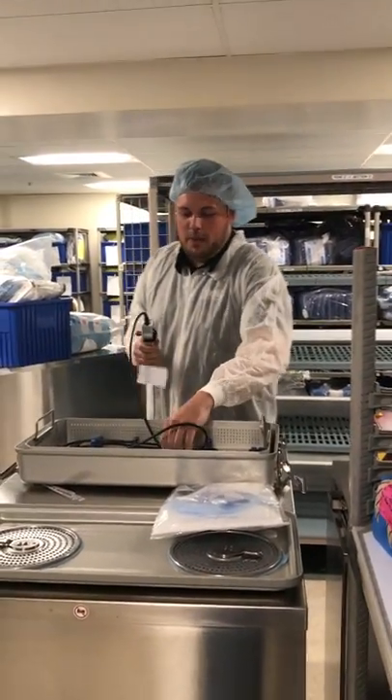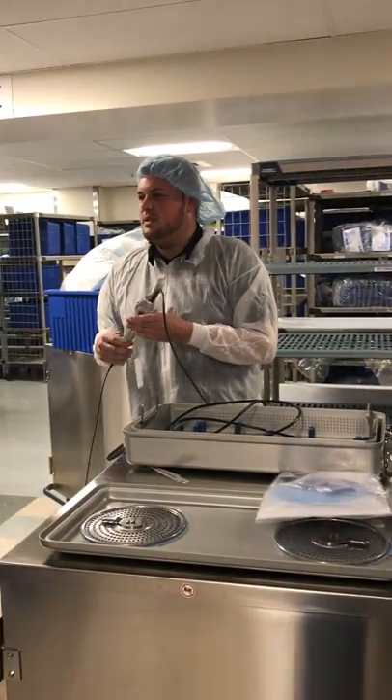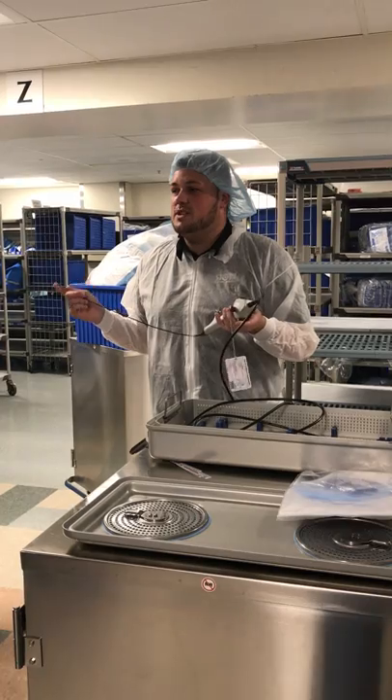If we were to transactionally repair your old fiber scopes, those are about $6,500 apiece. If one of these breaks and you had to replace it, it's about $10,000 — so a very expensive piece of equipment.